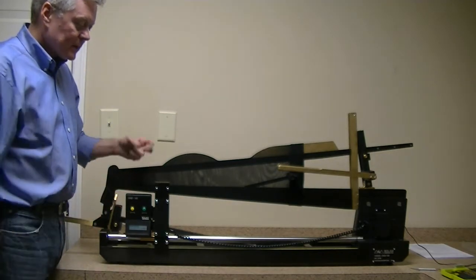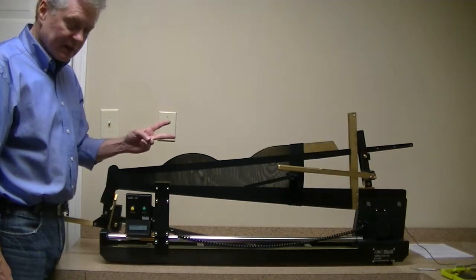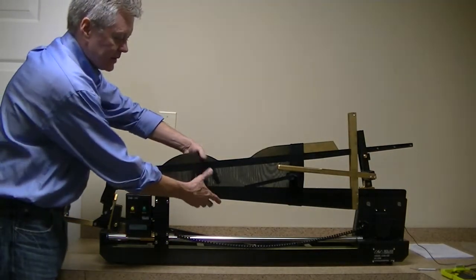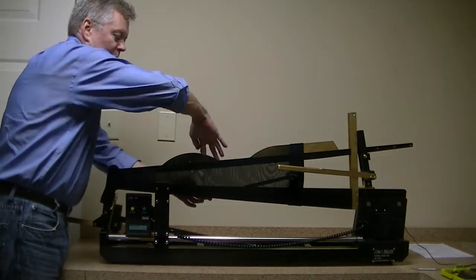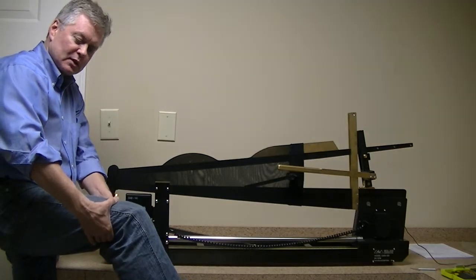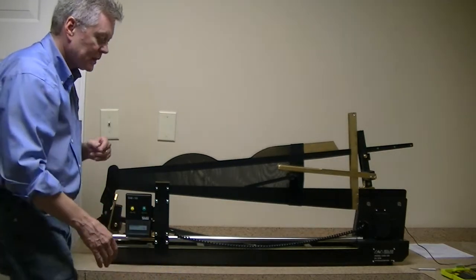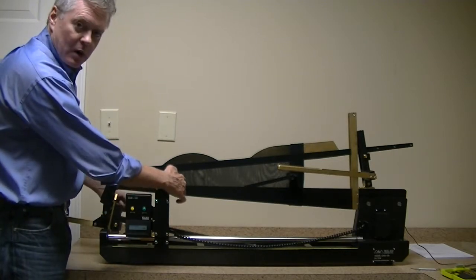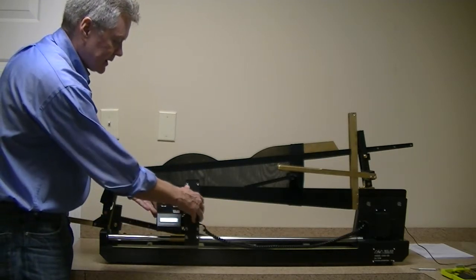Therefore, using this machine, it's important that you know two things: one is what is my design intent, and what is my girth - the distance around the former here, which is the same as the distance around the circumference of your leg for the intended person. Then whatever this tension is in the sidewall, when this is applied against that location, it gives a reading that's proportional to a known weight.